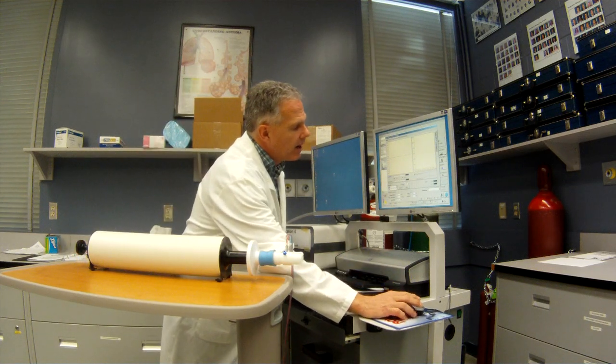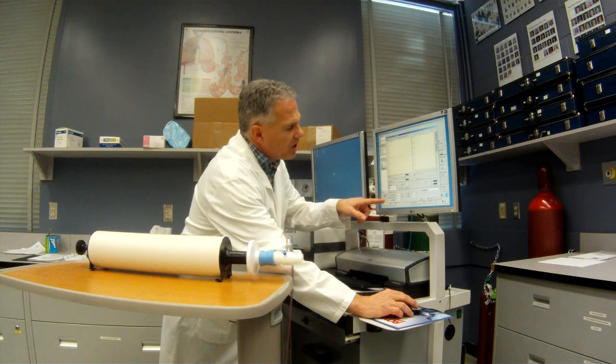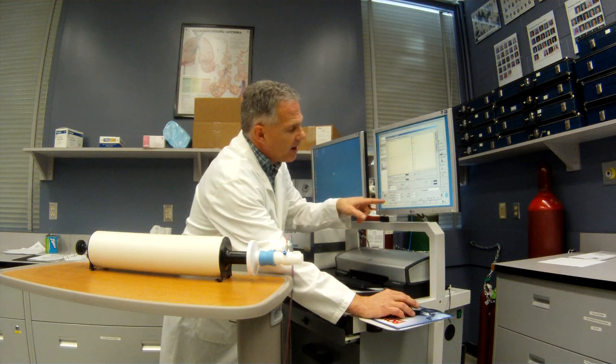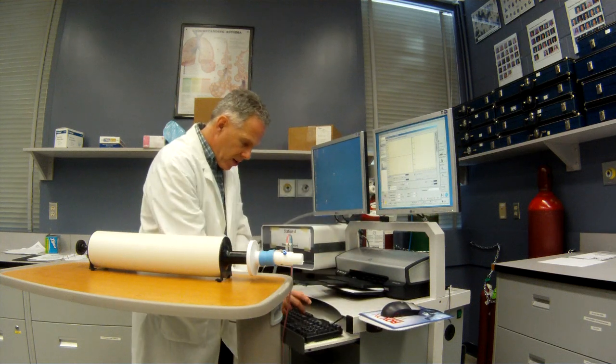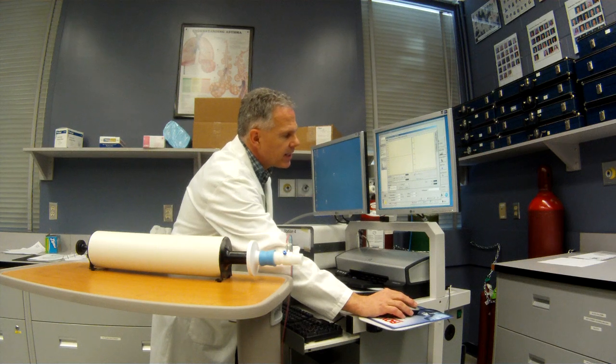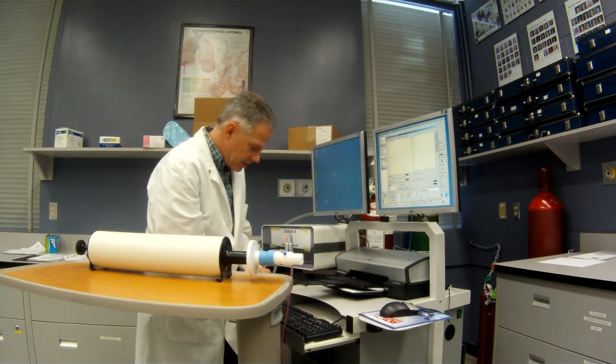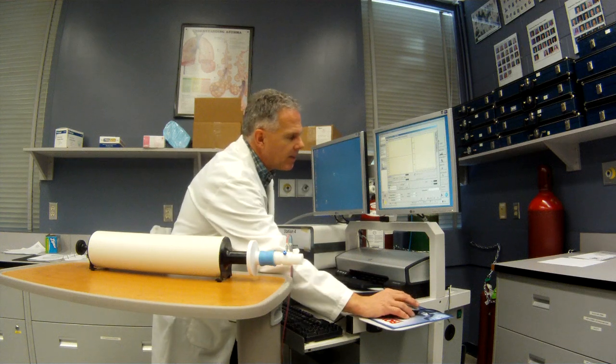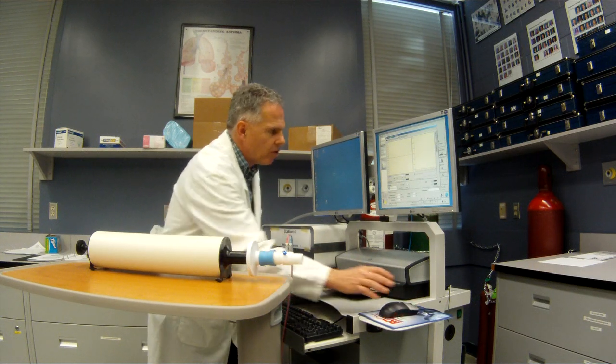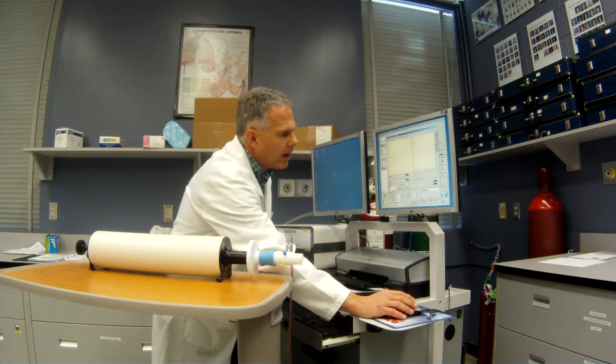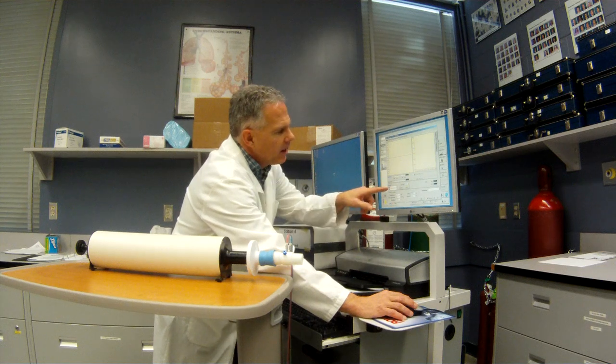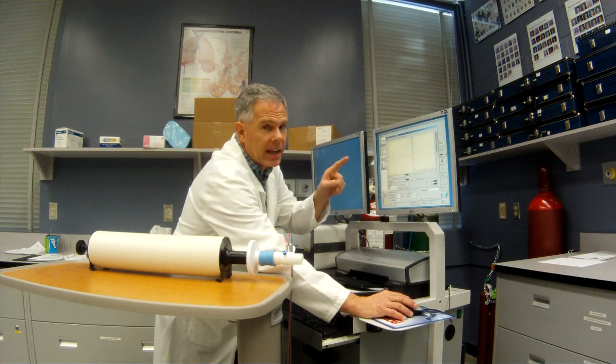So, now, when I go in here, initially we're going to do a calibration. It's really important to make sure I set up the temperature. So the temperature is set already. I've got it at 21 degrees. The barometric pressure today is 661. The humidity is 29%. So I'm going to set those basic parameters up. And now we're ready to go. So I'm going to hit Pitot tube with Filter and Calibrate.